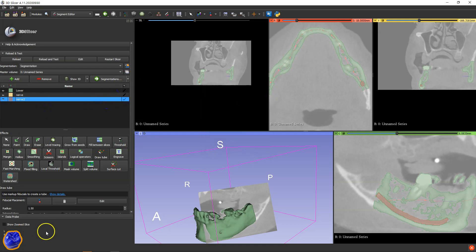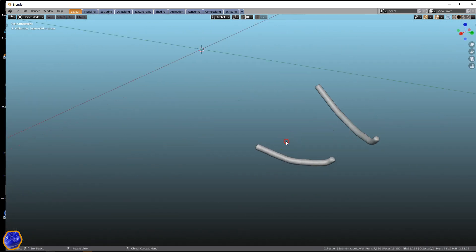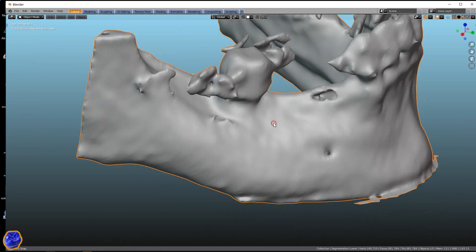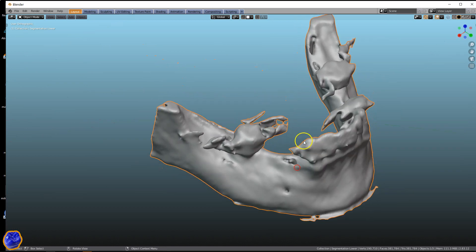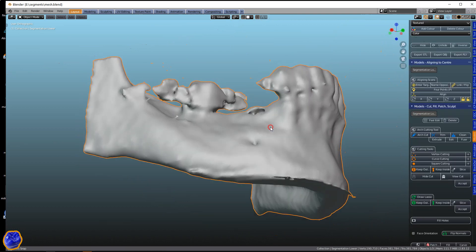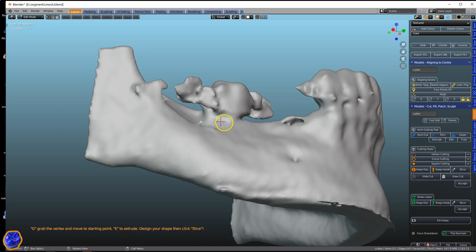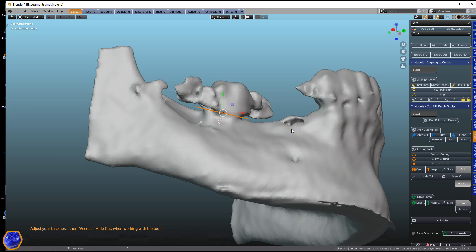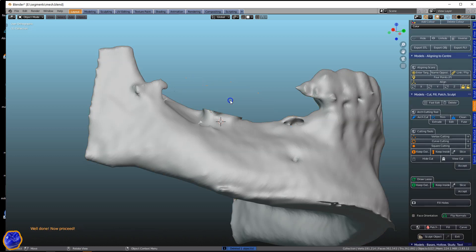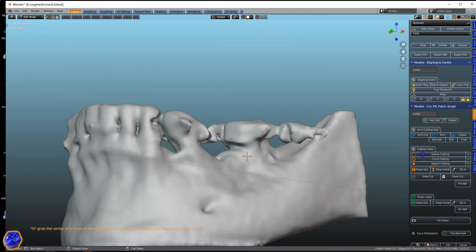Then we're going to head over to Blender and import these segments. So we've got a lot of mess going on on the top. We could have segmented this in 3D Slicer which is probably easier and faster — I'm just going to demonstrate how to do it. I'm going to get myself a vertex cutter. Position the vertices accordingly. Click on Slice and then apply this. Accept that. And that should make two objects. Delete the other object. And we're going to do the same on the other side — I'm going to fast forward this.